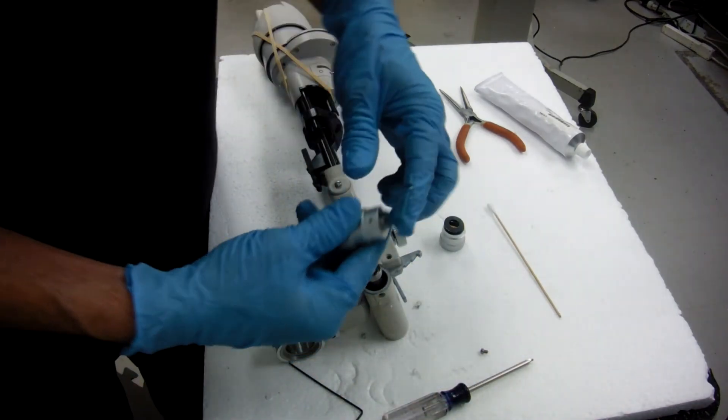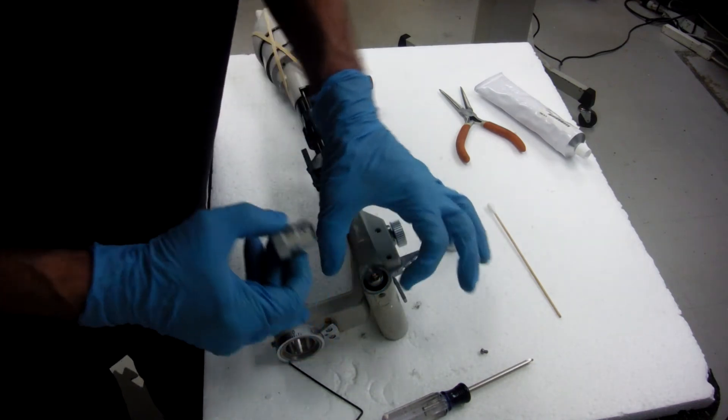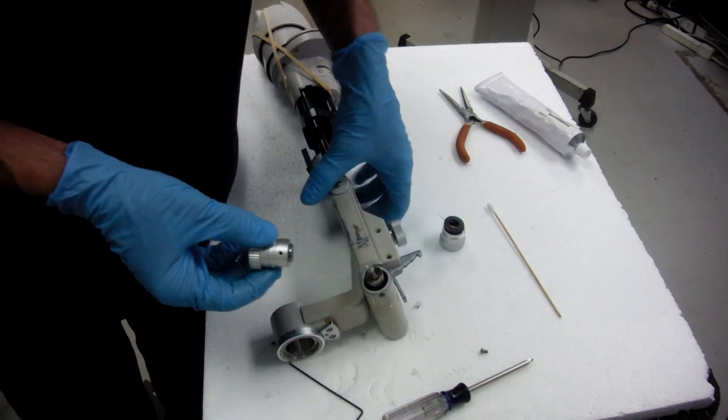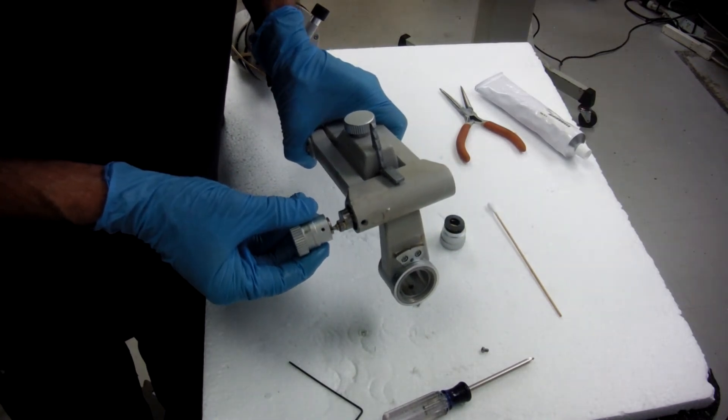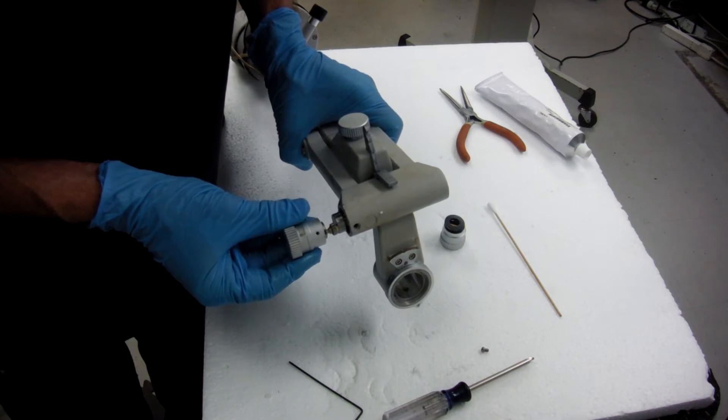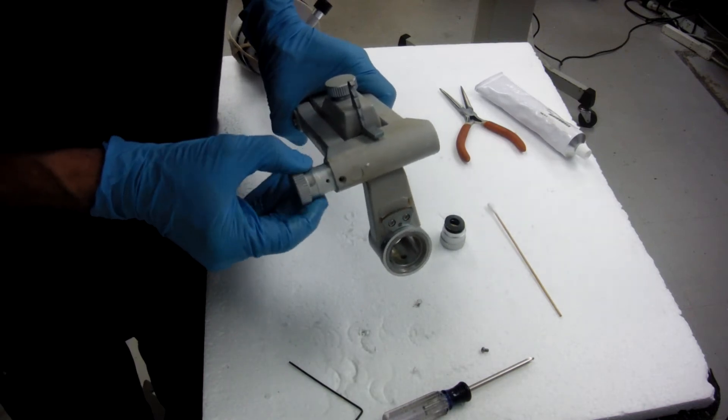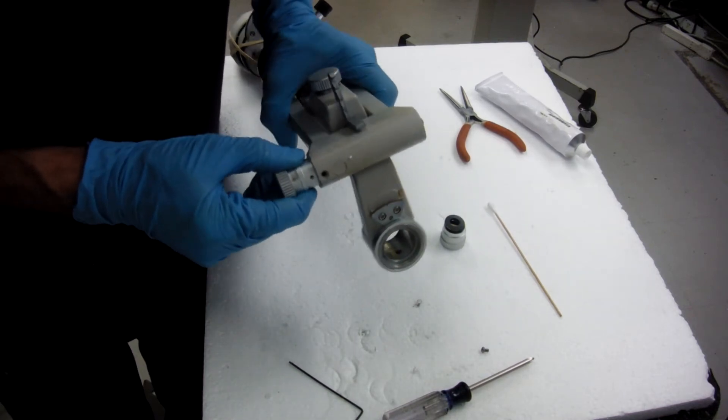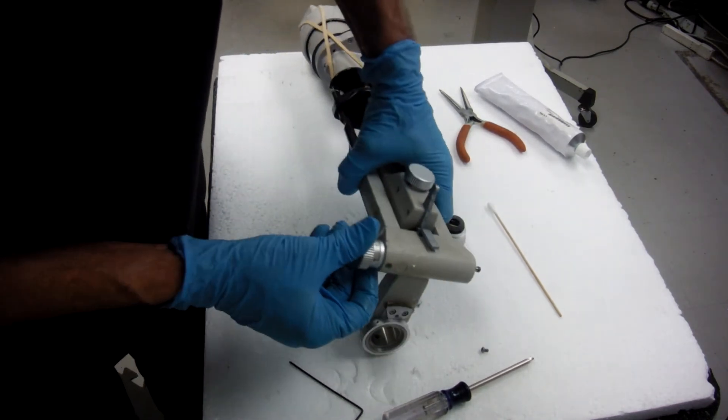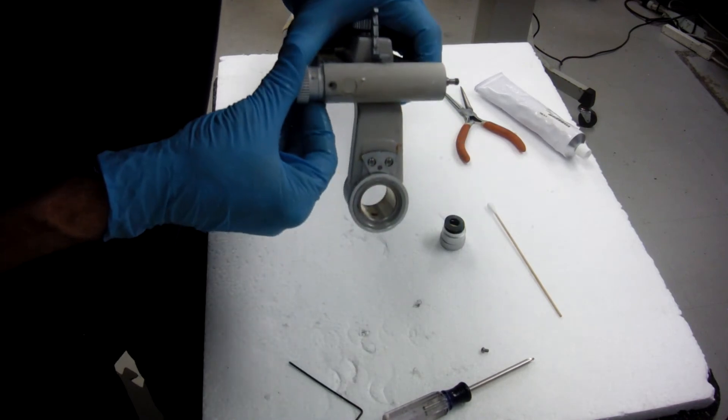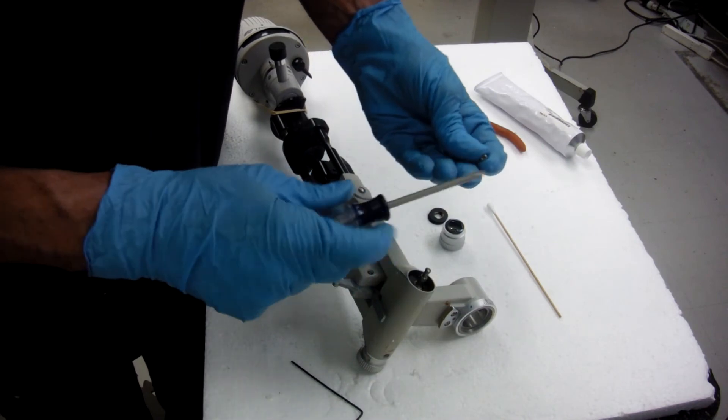There's a couple ways you can do this. If you've got your hole and your notch lined up and you have this all the way in the bottom, everything is going to line up. But if you don't think you can do it, go ahead and just line it up with your cam right there and just push it right on in. Line it up, screw back in.